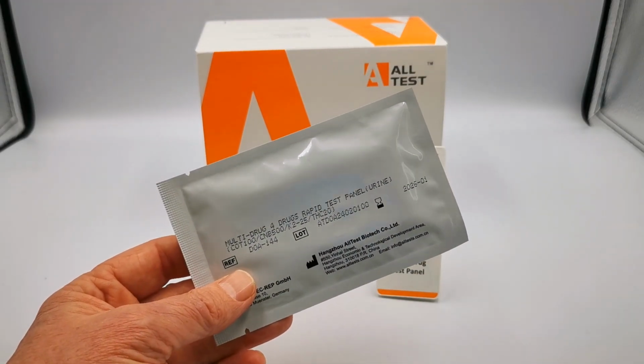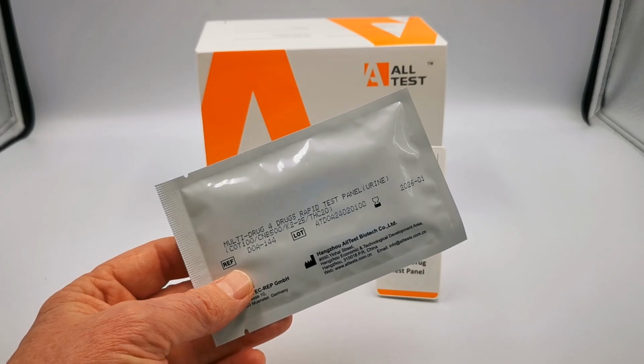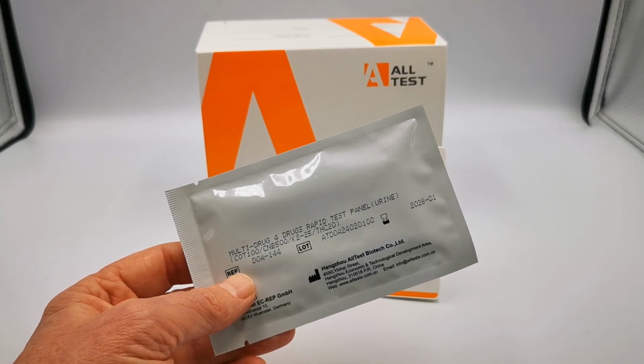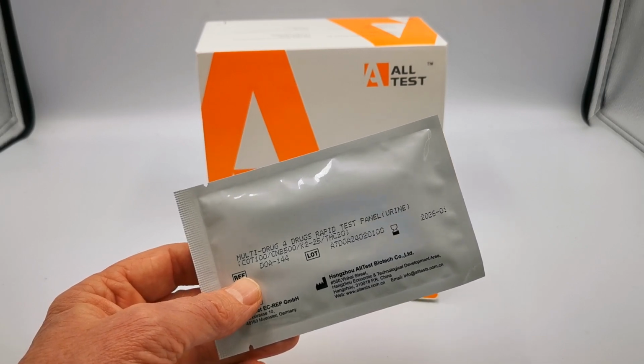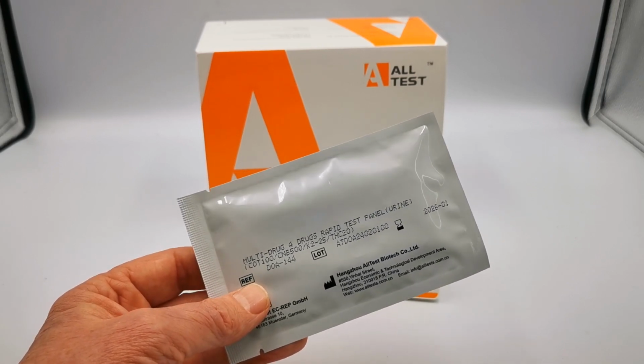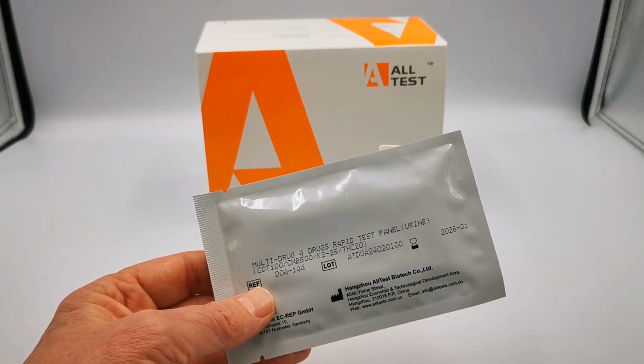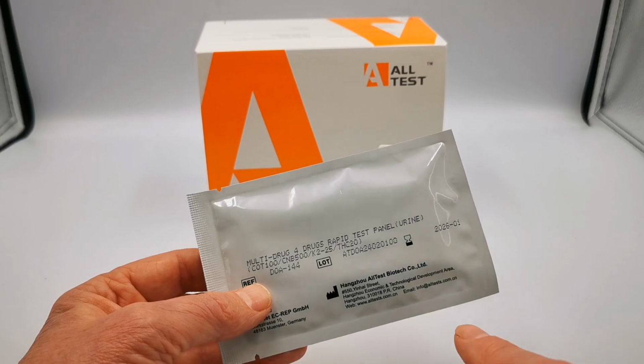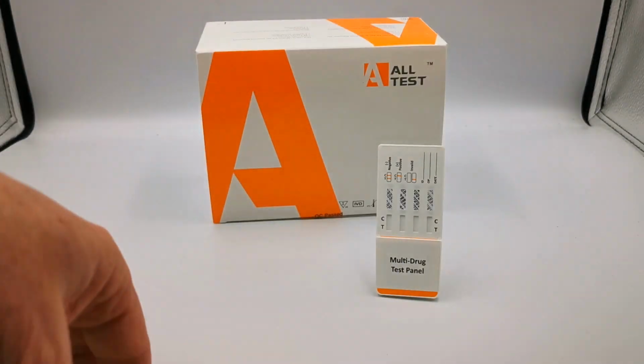That's synthetic cannabis, and a lot of these new vapes that are being marketed are claimed to be containing synthetic cannabis to avoid detection by standard drug tests. And then the standard cannabis detection, this is an ultra detection one, screening down to 20 nanograms. So you've got 4 individual tests.